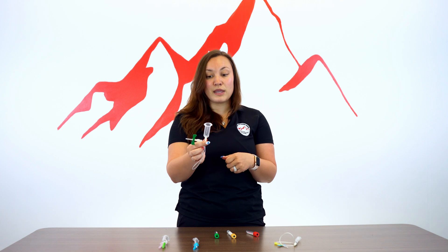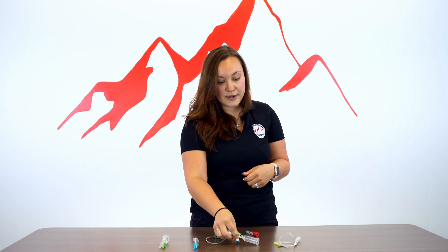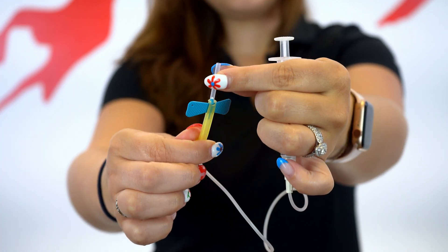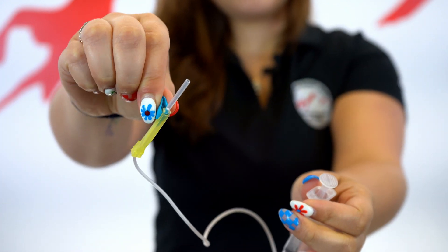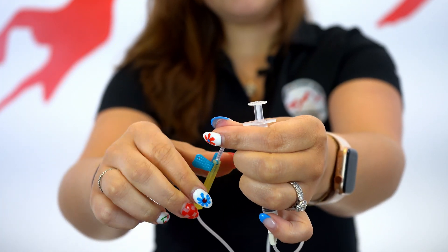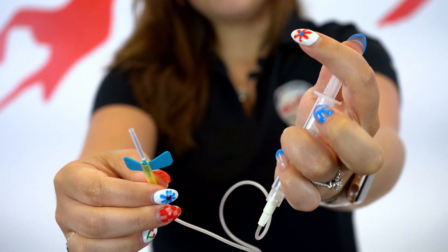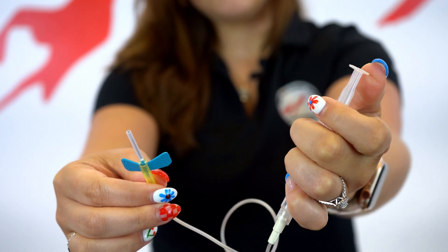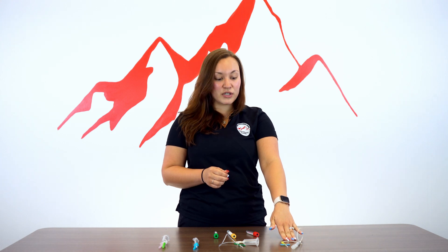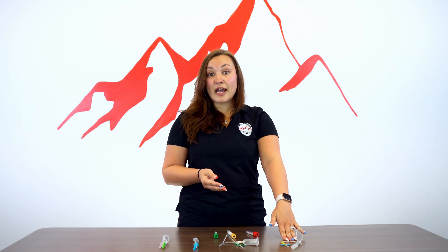You can also attach a syringe onto the green butterfly and pull manual pressure. There is also a blue butterfly, which is on a syringe that allows for manual pressure, and can also be added to an evacuated tube system. The blue butterfly would be used for patients who have really small veins — elderly patients and pediatric patients with veins that are really difficult to find and to puncture.